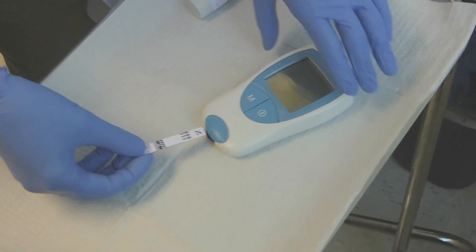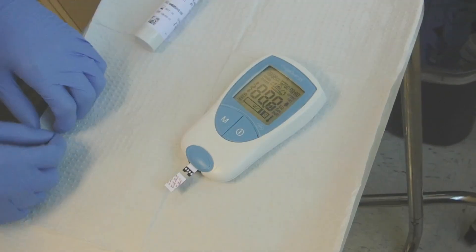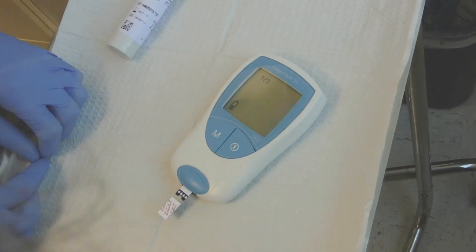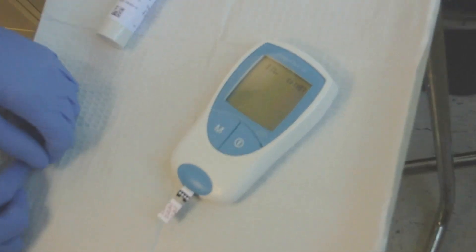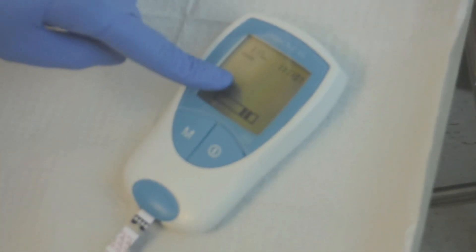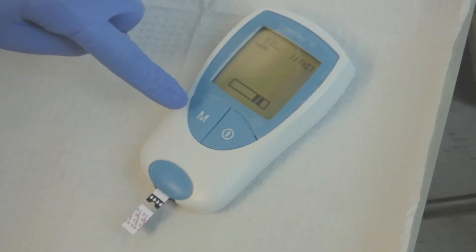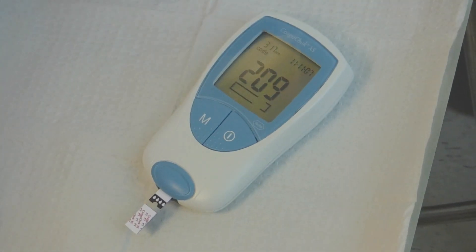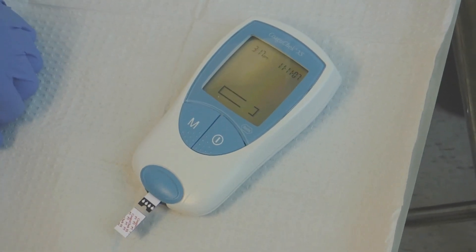Now see, this is off. And then you put it in and it just comes up, it turns on. Do you know I got this for $120 on the internet? Somebody was just selling it. They must have got it for free.